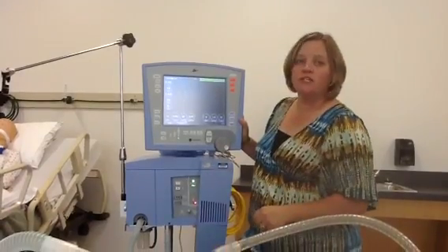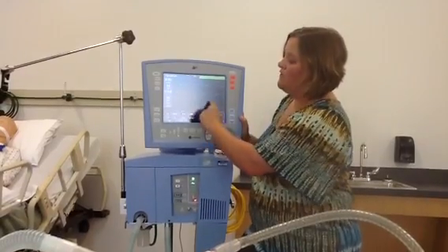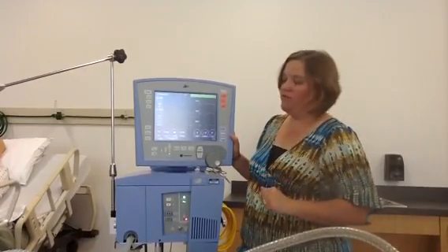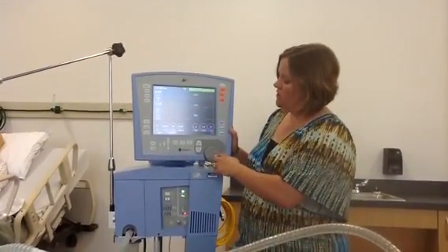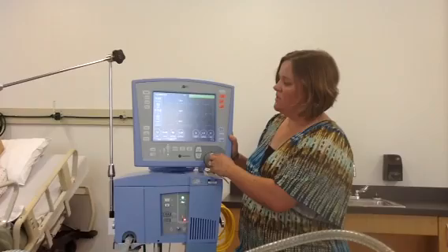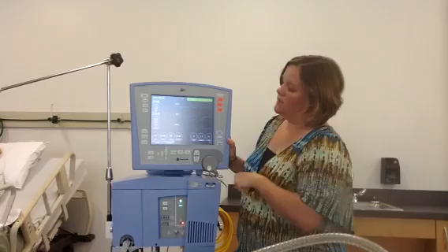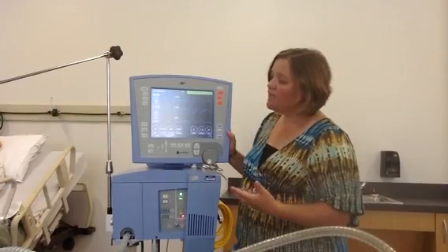This next button is a freeze button. If you want to freeze that point in time on your ventilator, all you have to do is push freeze. Everything on the screen freezes — the ventilator is still breathing for the patient — but we've stopped everything on the screen. You can then use your knob to show a cursor. If you wanted to find out the peak inspiratory pressure for a specific breath, you could use the knob to get to that area and find out the peak pressure, the flow at that time, and the tidal volume.